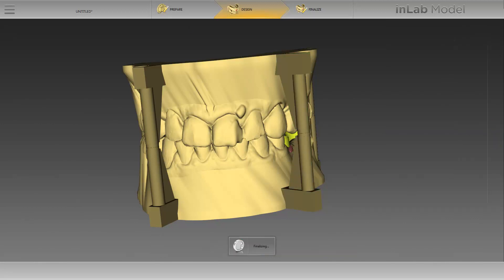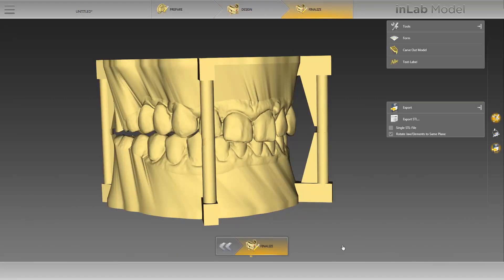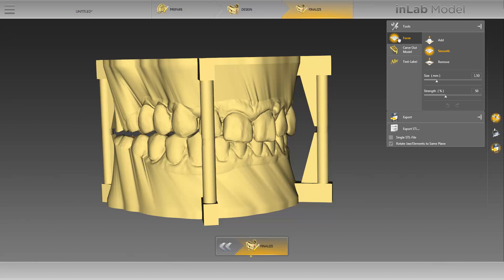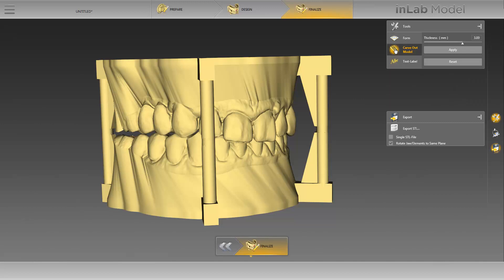Depending on the amount of data, the calculation of the final models may take some time. In the finalize phase, three tools are available for us. The form tool can be used to apply, smooth or remove material. This tool is similar to the form tool in the design phase of the InLab CAD software. Therefore, we will move directly to the second option, the carve out model tool. This tool can be used to carve out the models. The slide controller allows you to define the wall thickness. We will leave this at three millimeters and click on Apply.